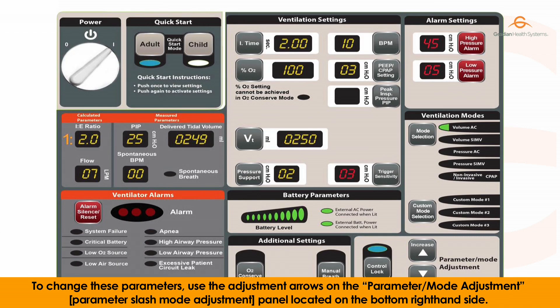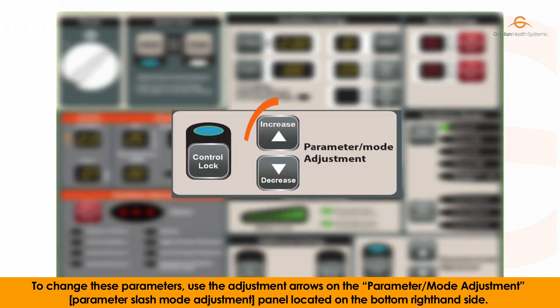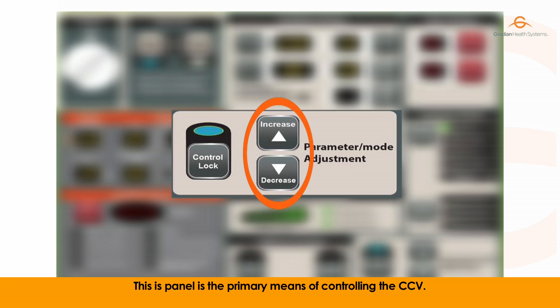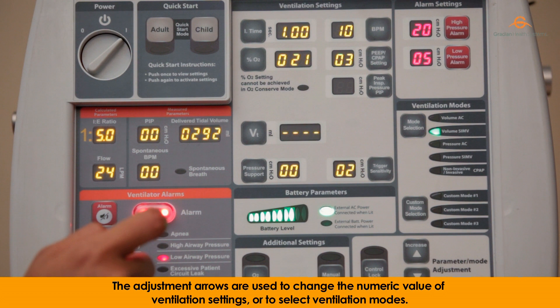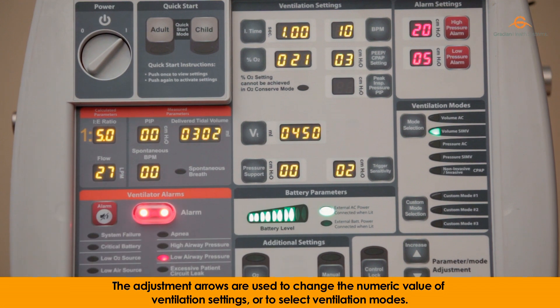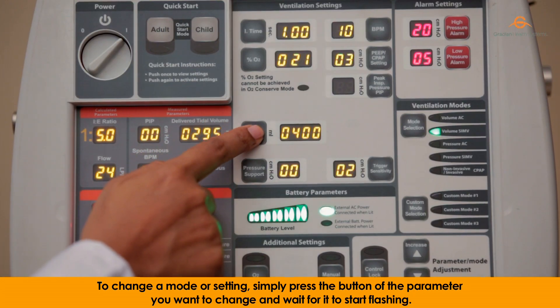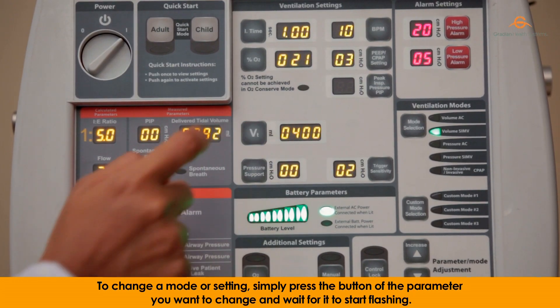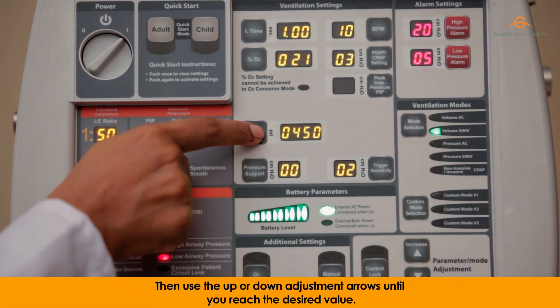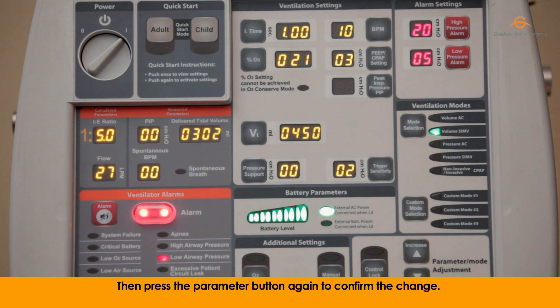To change these parameters, use the adjustment arrows on the parameter/mode adjustment panel located on the bottom right-hand side. This panel is the primary means of controlling the CCV. The adjustment arrows are used to change the numeric value of the ventilation settings or to select ventilation modes. To change a mode or setting, simply press the button of the parameter you want to change and wait for it to start flashing. Then use the up or down adjustment arrows until you reach the desired value, then press the parameter button again to confirm the change.